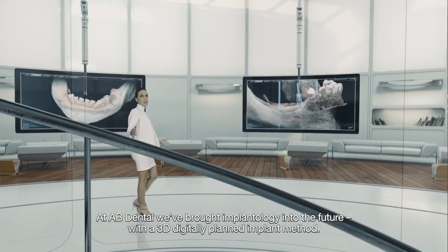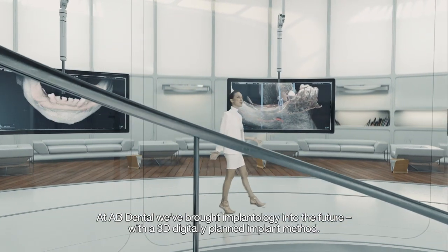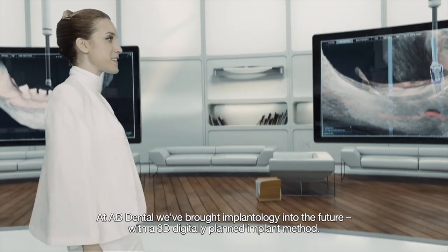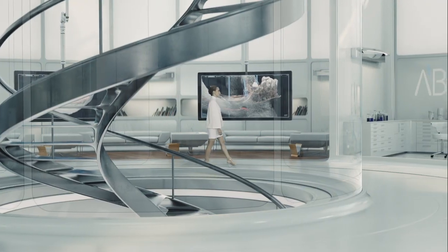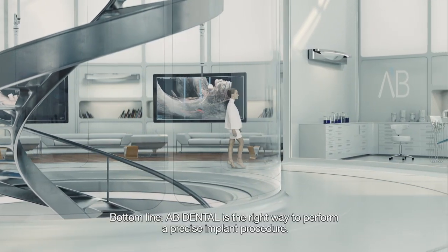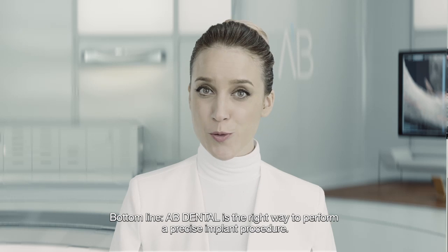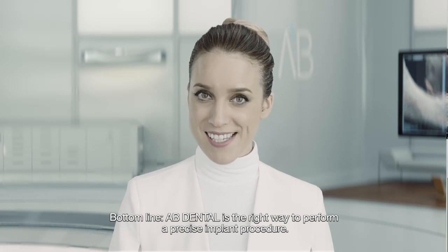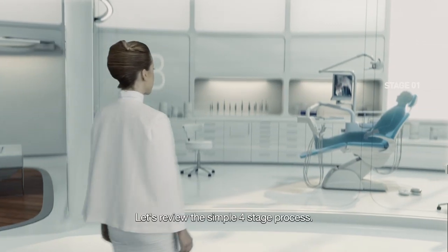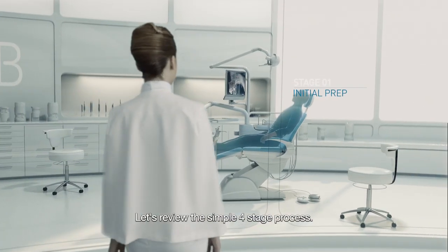At AB Dental we've brought implantology into the future with a 3D, digitally planned implant method. Bottom line, AB Dental is the right way to perform a precise implant procedure.